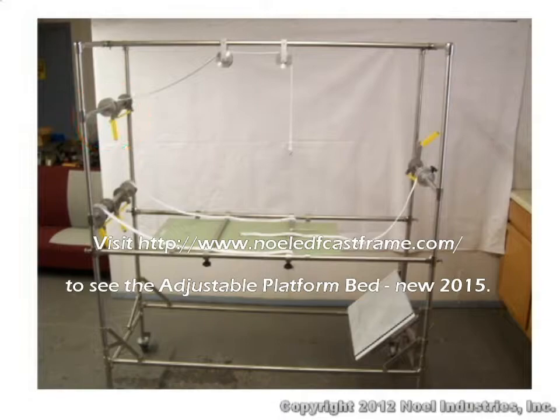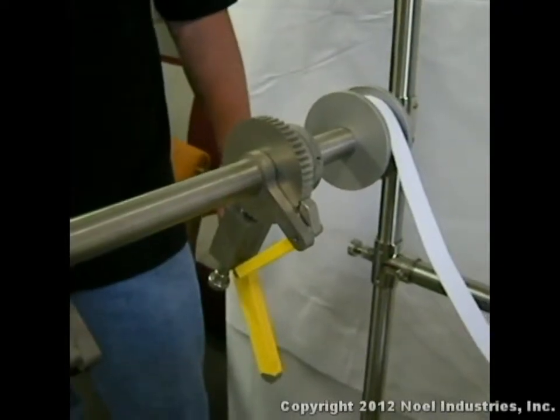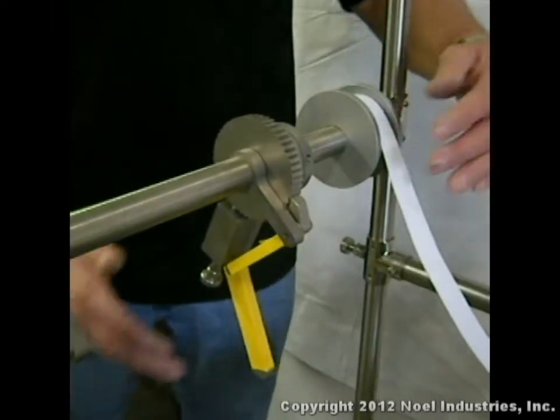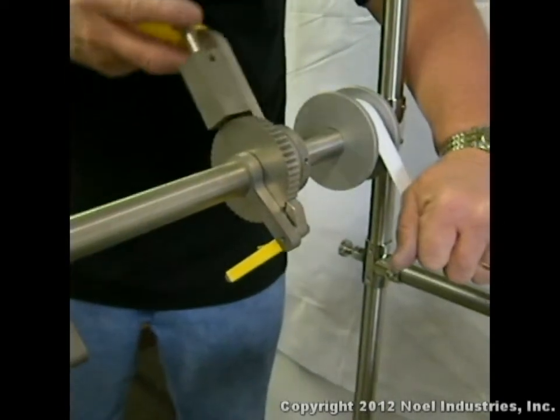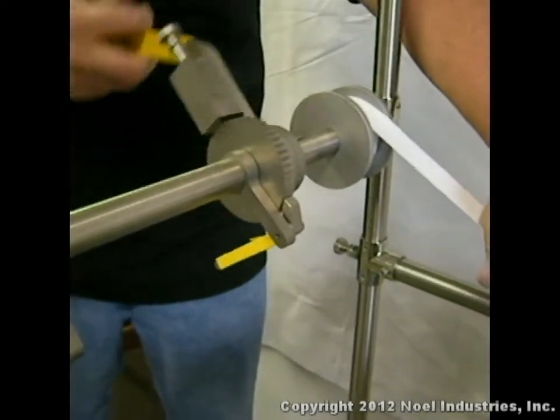Tension is then appropriately applied using the ratchets. Tension is increased by moving the ratchet lever up and down while the lock remains engaged. The lever is moved until the level of tension is satisfactory at each of the four points.